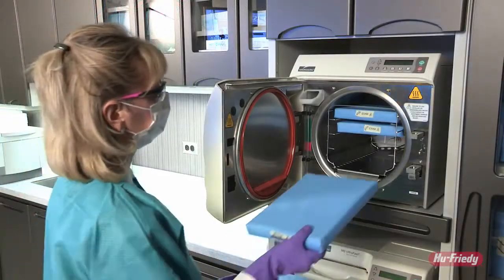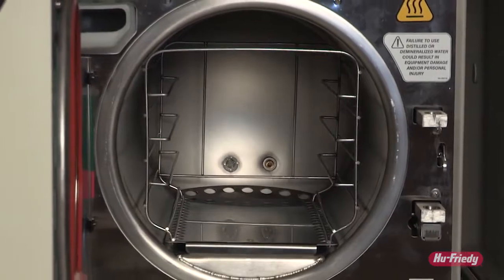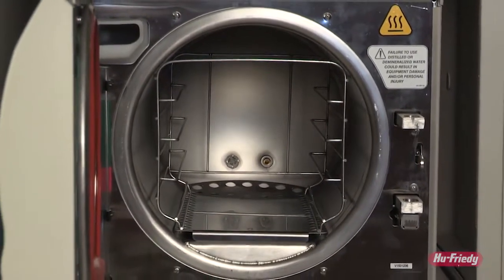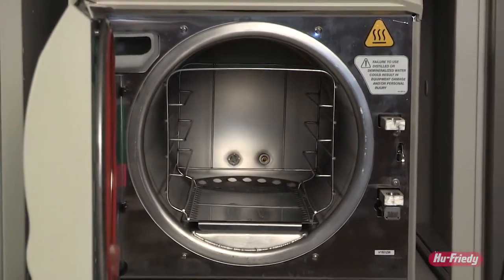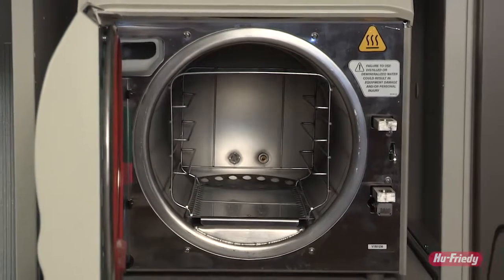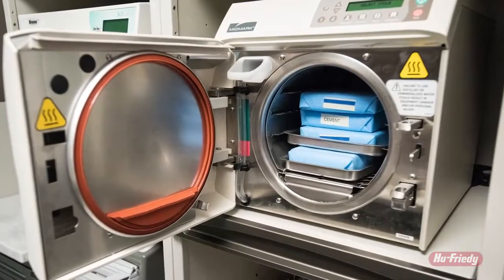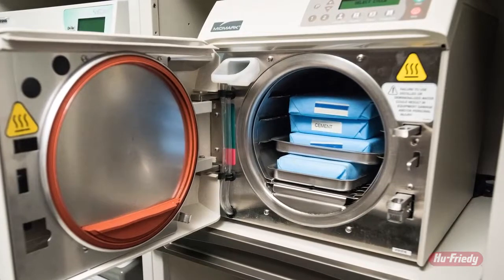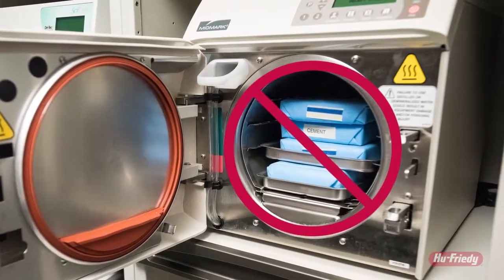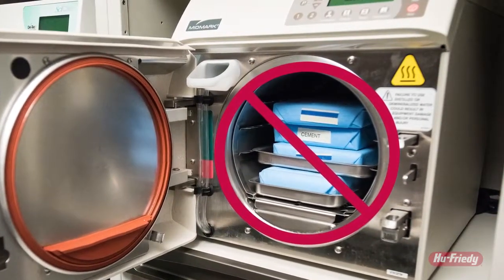Place cassettes into the sterilizer. It is recommended to use the cassette racks sold separately by the manufacturer of the sterilizer to allow for optimal capacity and proper flow through. Never stack cassettes directly on top of each other in a sterilizer, as this will prevent proper airflow through the cassettes during the sterilization cycle.